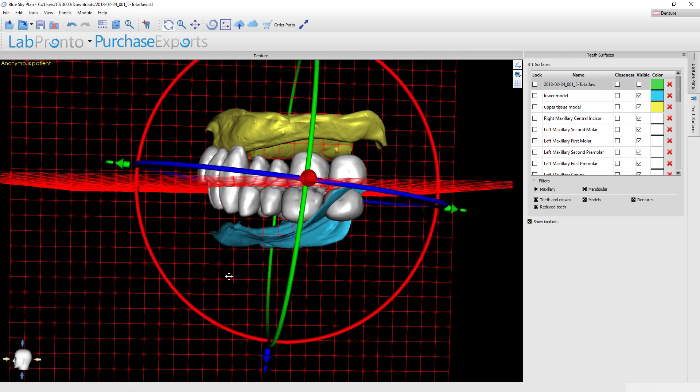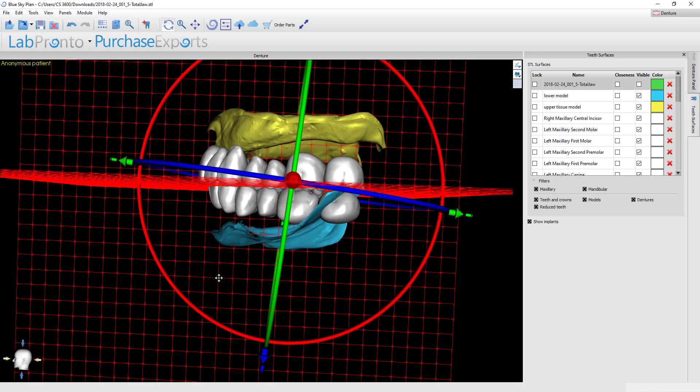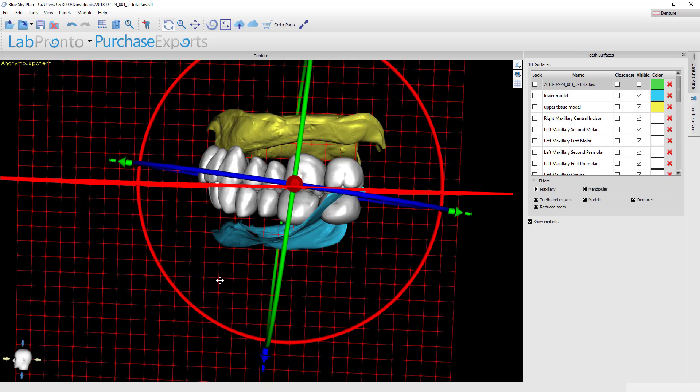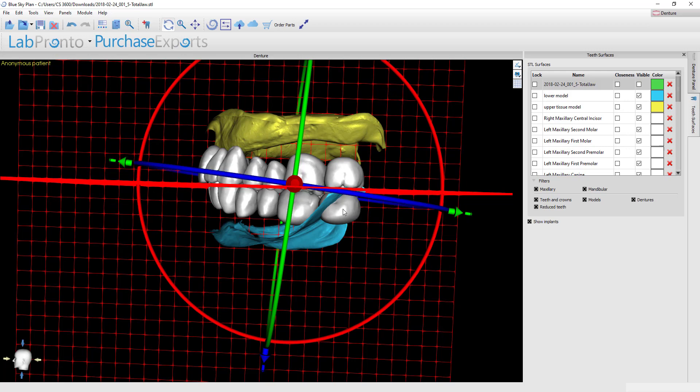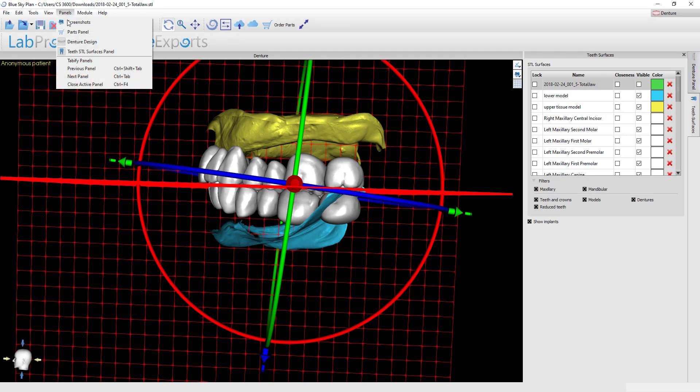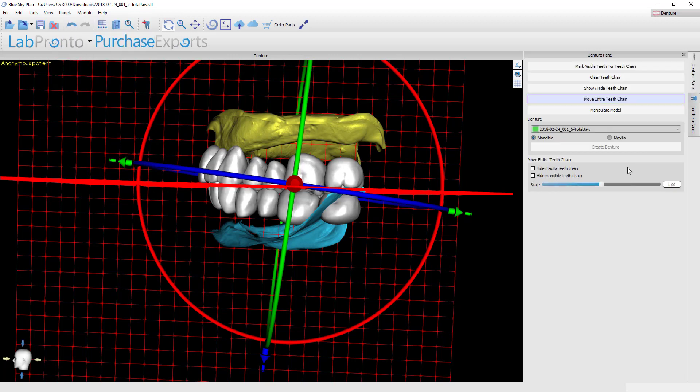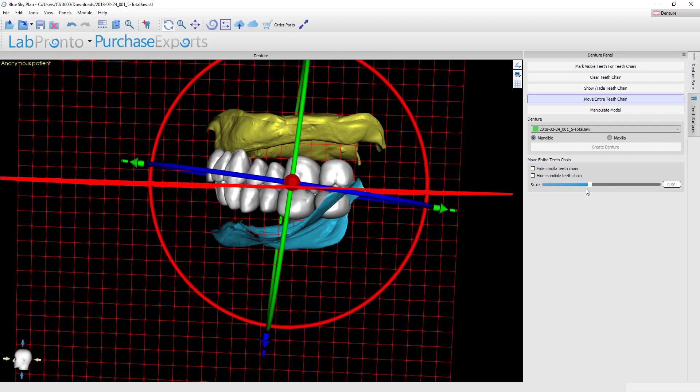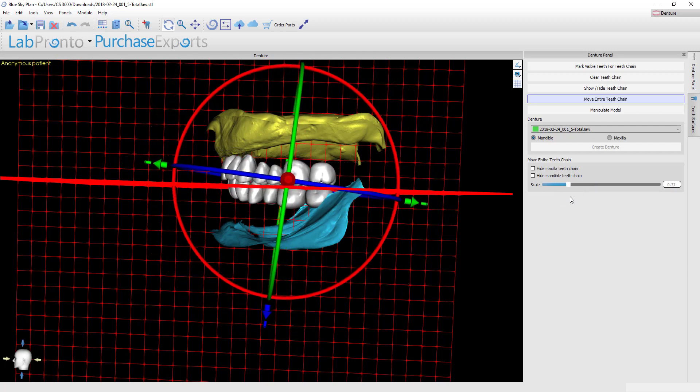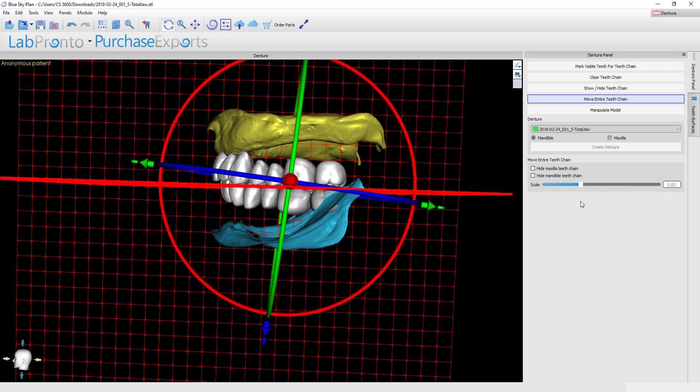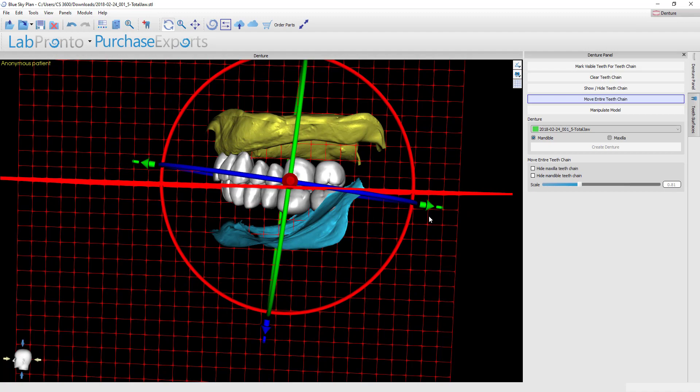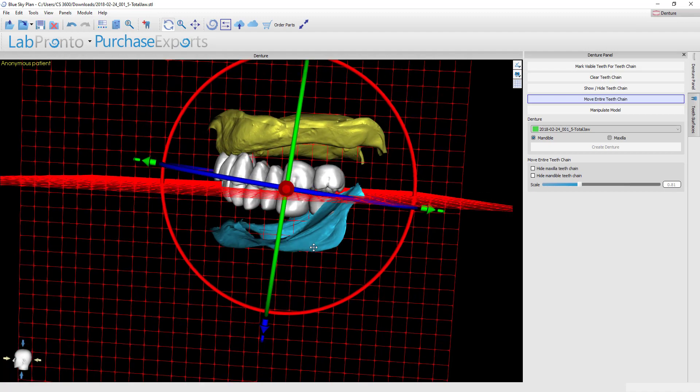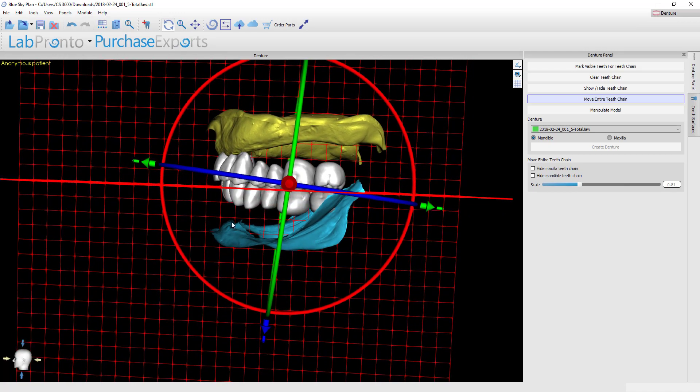This setup is looking very close. We're 90% of the way there. However, the first thing that jumps out to me is that these teeth overall seem to be scaled far too big for this particular patient and we've got second molars sitting back here in the area of the hamular notches and on the retromolar pad. That's obviously too big. I could go to panels, open the denture design panel, and when you do that you're going to see a slider at the bottom of the menu and we can adjust the scale up or down. So if you wanted to you could scale these teeth to much smaller and then move them into a more accurate position.